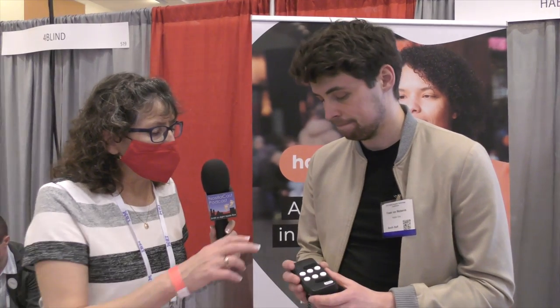And this works with iOS and Android or just iOS? iOS, Android, tablets — works with all. It looks like the standard Braille six keys, but it's also got two black keys to the side. Yeah, the six Braille keys and two function keys. We use Braille, but actually a lot of our users don't know Braille. It's really based on making navigation easy, and a lot of users will learn Braille in the process.